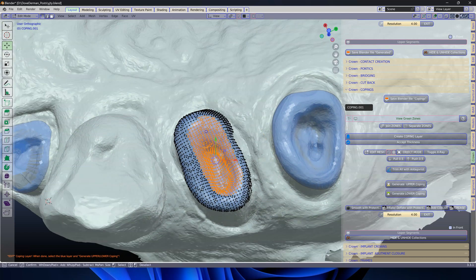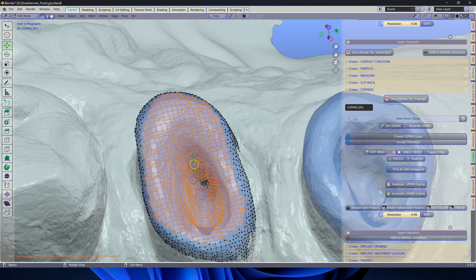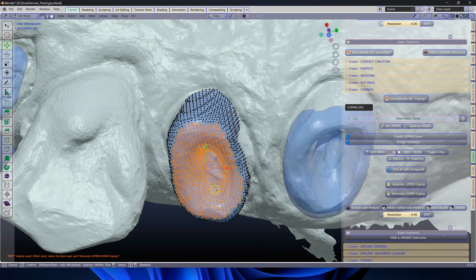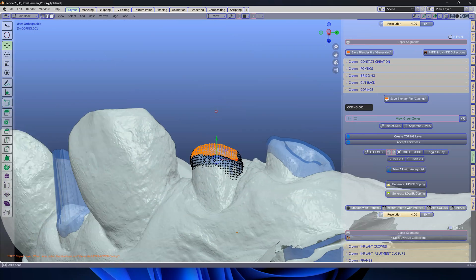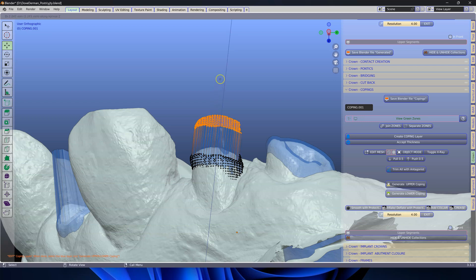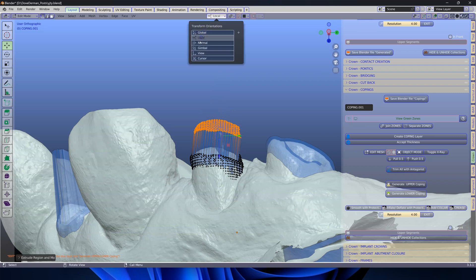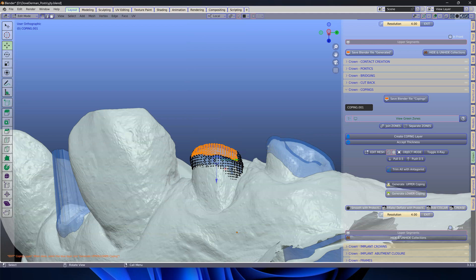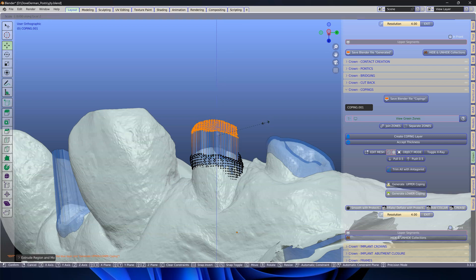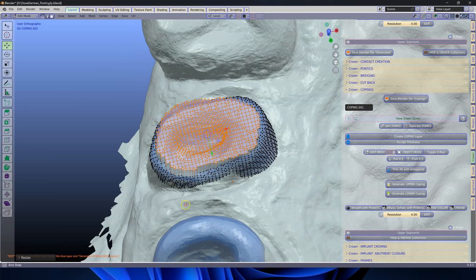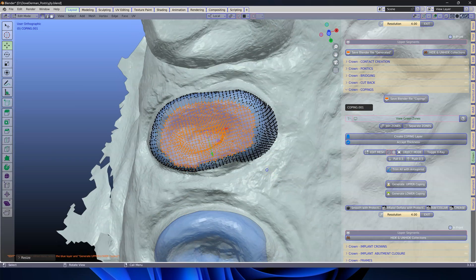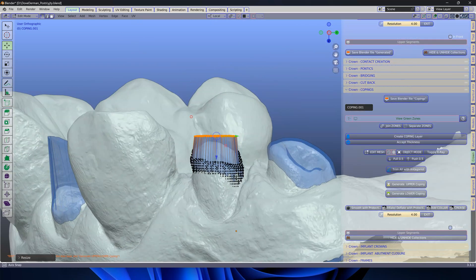I'm going to brush the vertices like this — make sure you get all of the vertices. It's quite important because we're extruding them in the upward direction. So E to extrude, Z, Z, Z until you get the Z. Now it's extruding a little bit in the wrong direction, but that's because we are in the view. So if I go back to local, and I go G — extrude Z direction — I can move it up in the Z direction. Then S, Z, 0 to make them flat. And then S to make them a bit less parallel over here.